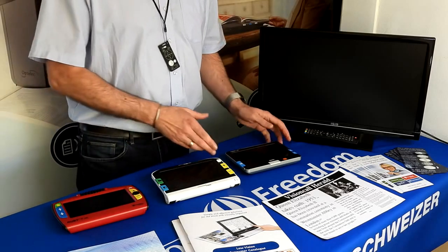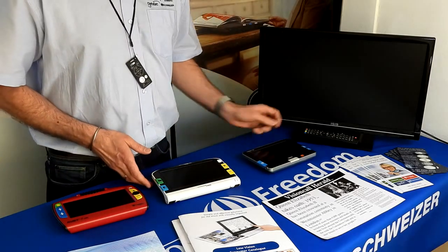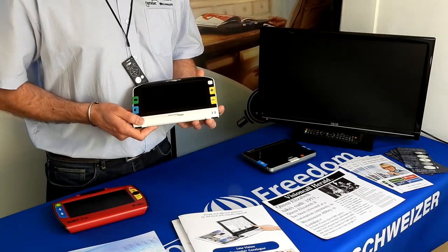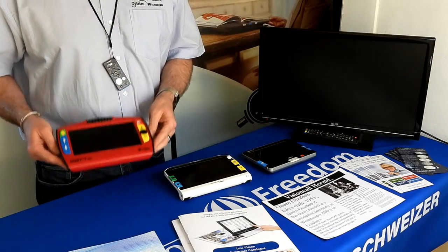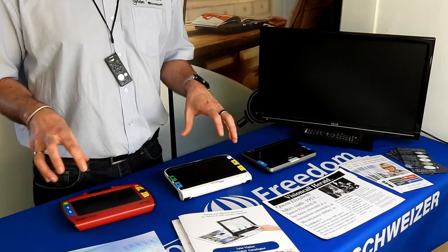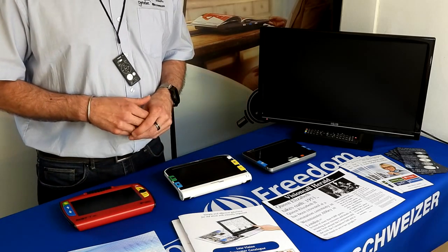We've got three in our range: our original Compact 7, which is the Optelec branded one; our Amigo HD, which is our Enhanced Vision branded one; and our Ruby 7 HD, which is our Freedom Scientific branded product. All are very similar in features but subtly different, with some extra features on one compared to another, which I'll explain.